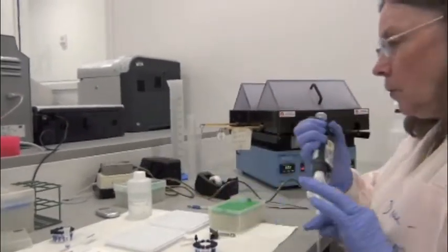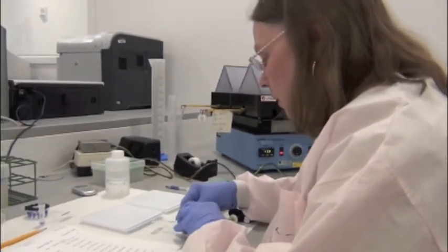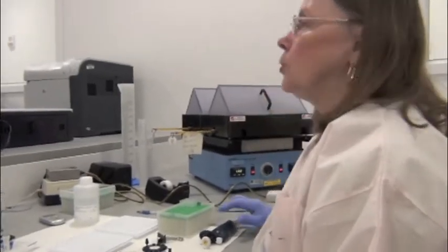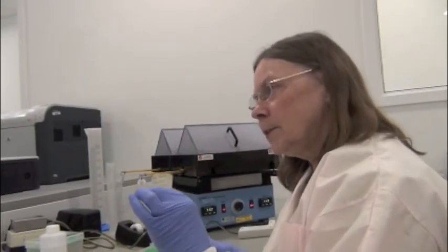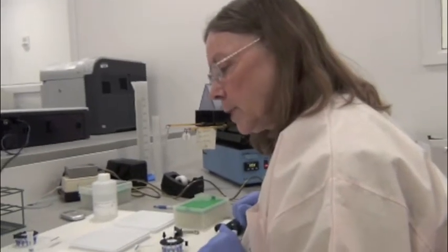We run a negative control with every assay and also an external positive control. What type do you use for your positive control? We actually use subtype 2. We used to use the 1s, but there's a reason we use 2 now. 2 doesn't have a number 6 band, and there's often a little ghost number 6 band. So if we see that band on our external positive control, we know it's really not a positive. So anything that's that faint on another strip, we will ignore. If it's stronger than that, then we're going to call it positive. So it's kind of our differentiation between what's negative and what's positive.